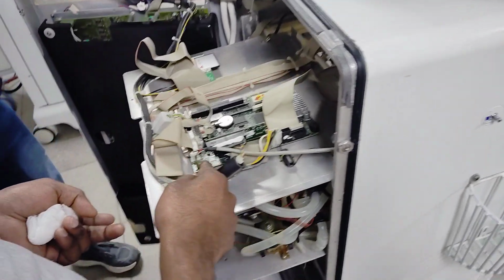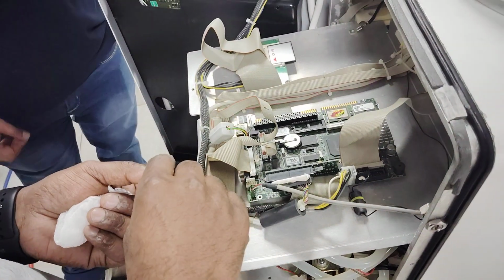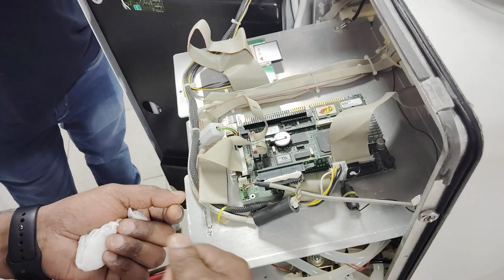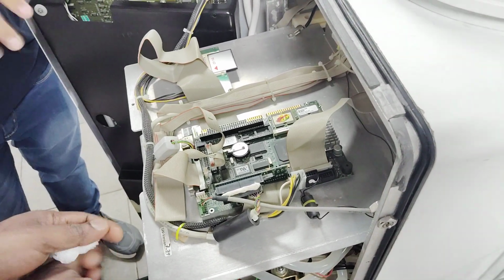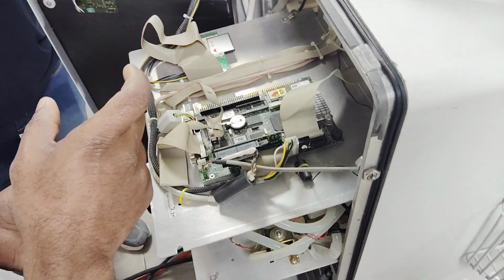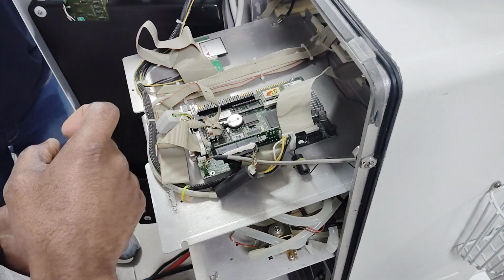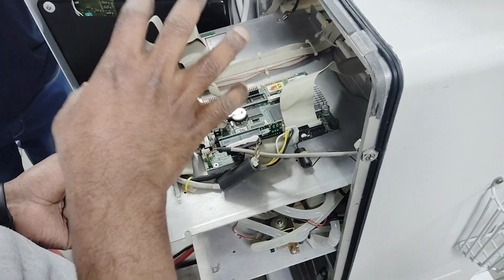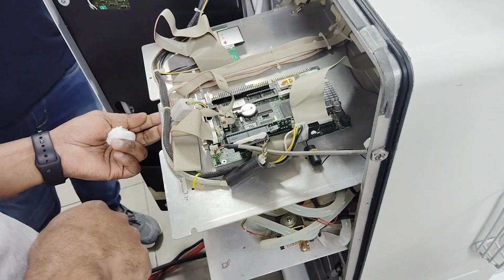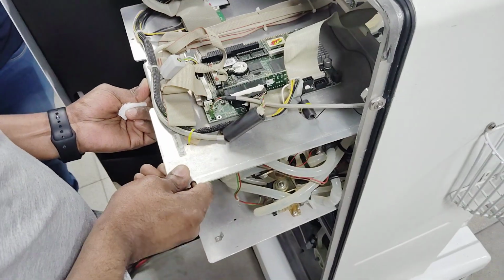Connections are there. We will connect a USB over there, and we have a USB stick with the software. So we always have a backup system, like an application. We have the original software with us, and whenever any problem comes in the machine, we have to identify the problem and install the software. Okay.